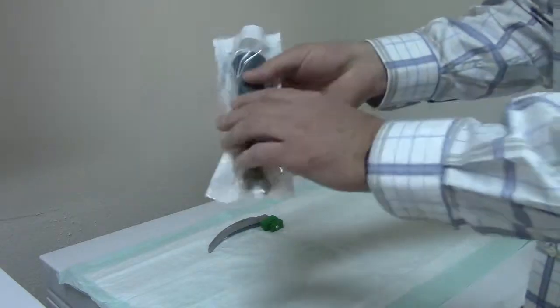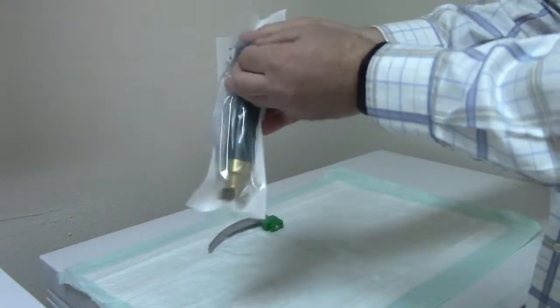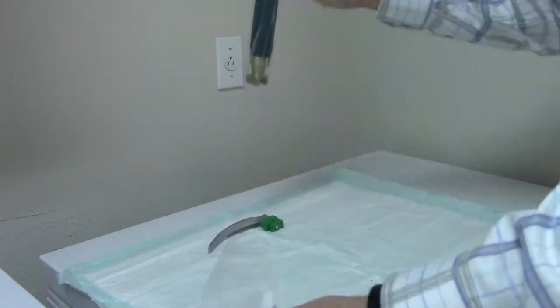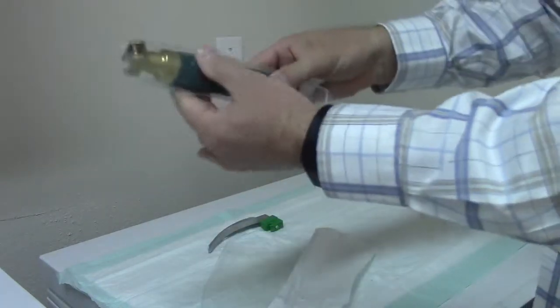When you're ready to use it, there are a couple of tearaways - a full Monty if you will. There's one, and two. The handle barrier is still in place.